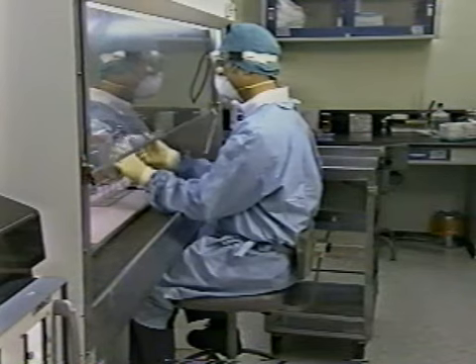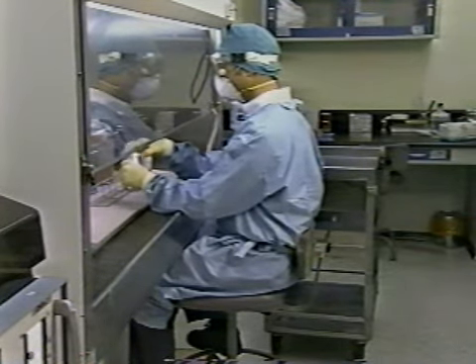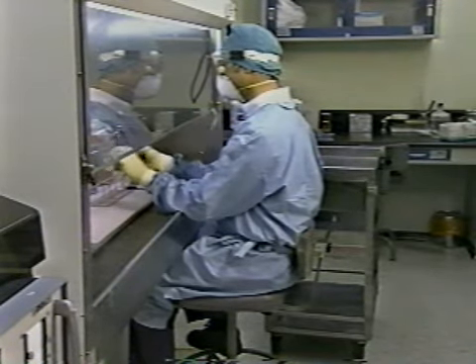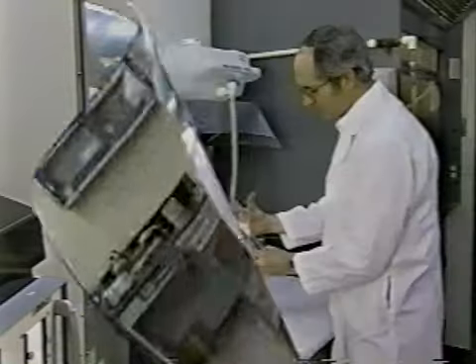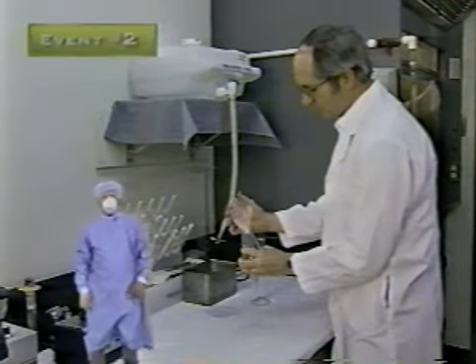Cross-contamination occurring during specimen processing will be reflected in all the subsequent steps of the testing process, from smear evaluation to isolate identification, and, if done, susceptibility testing. What did you see in this part of the process?